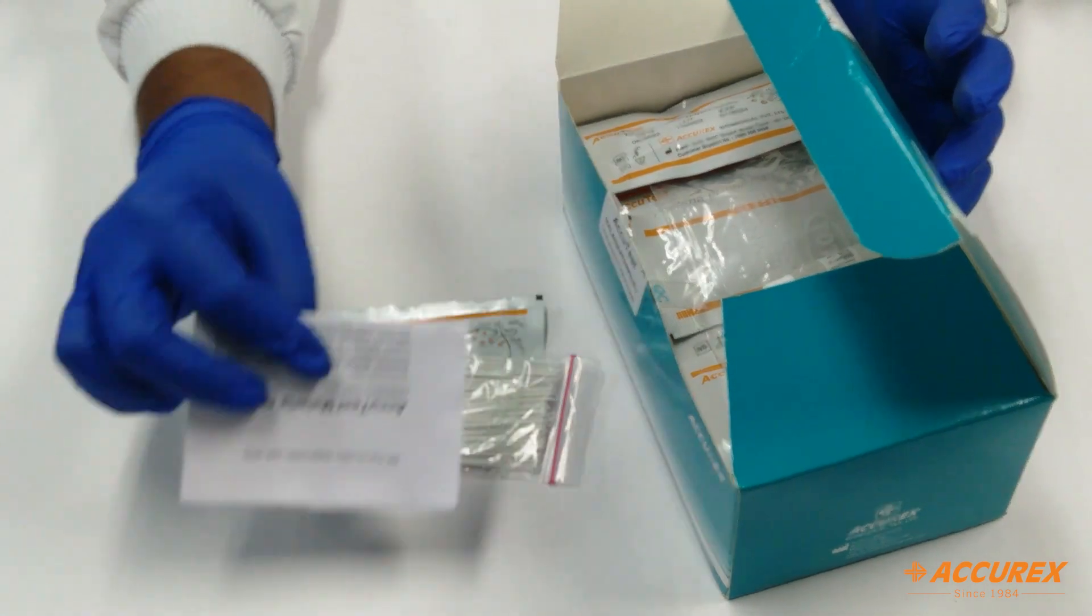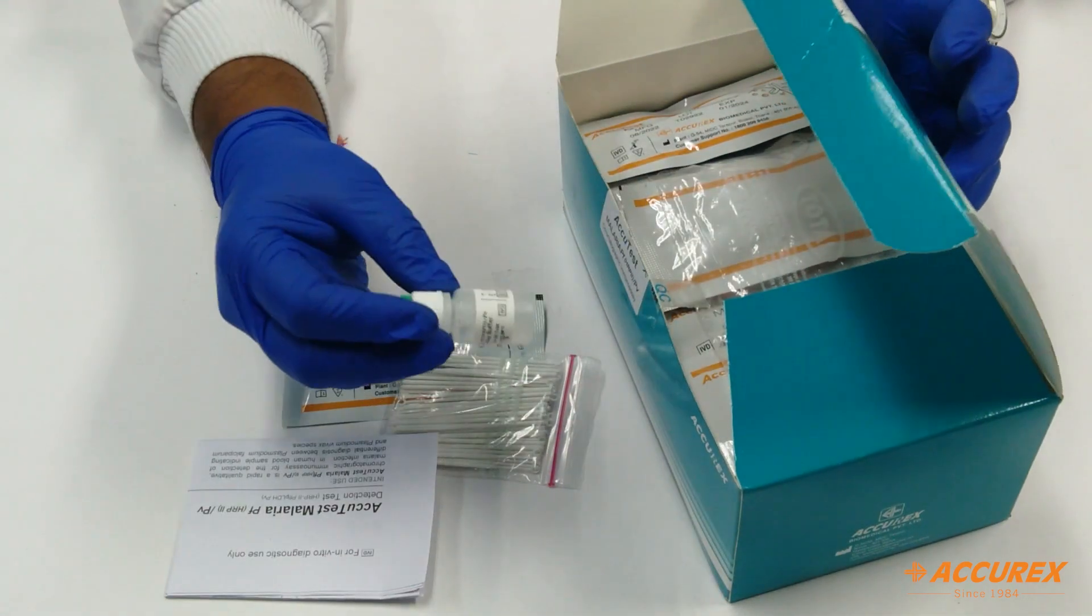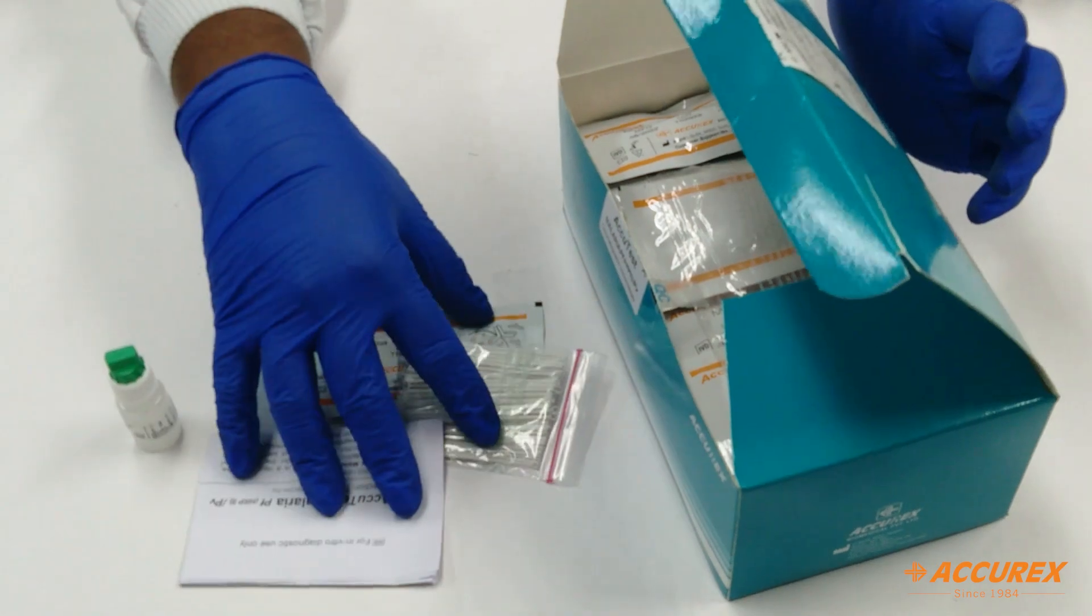then one package insert and one buffer. So next we will see how to use the card.